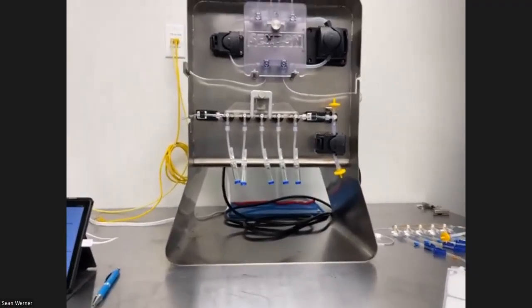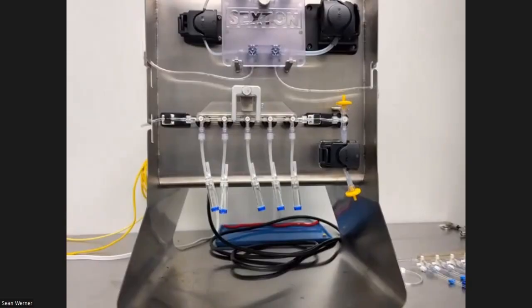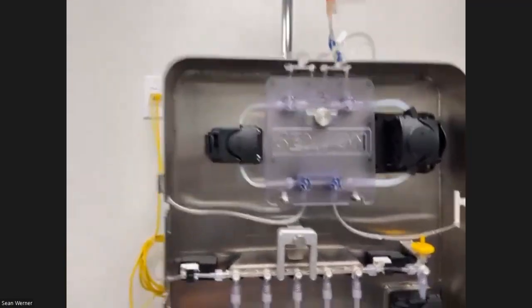Well, we have some Microsoft or Windows-based tablets that we use that can go in the clean room and be wiped down and all of that. But we're able to use that instead. That probably would be good for us. Yep, that is the idea, that's available soon. But yeah, you can use any Android tablet at the moment.